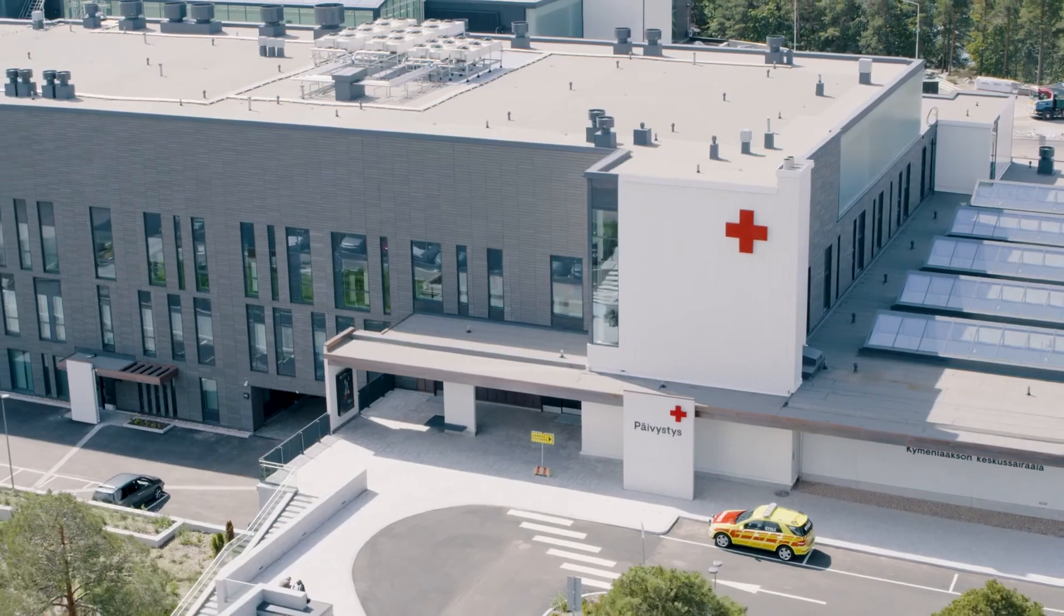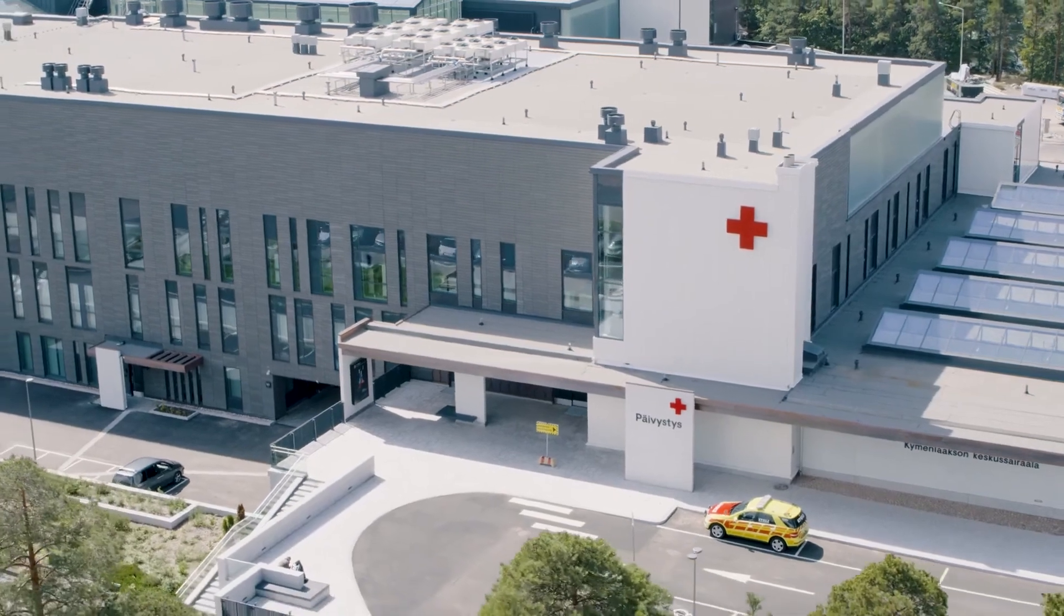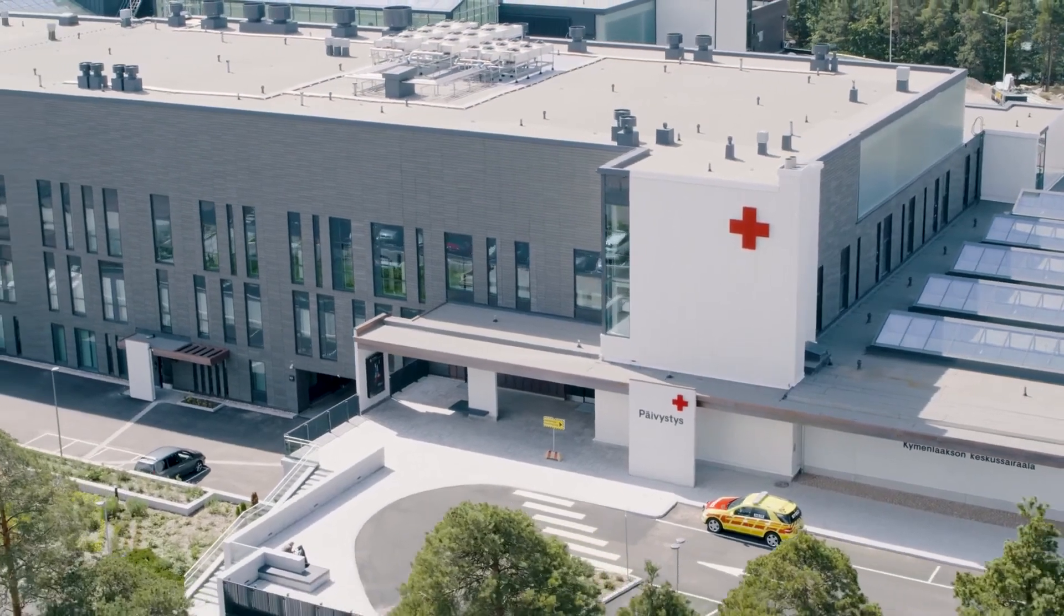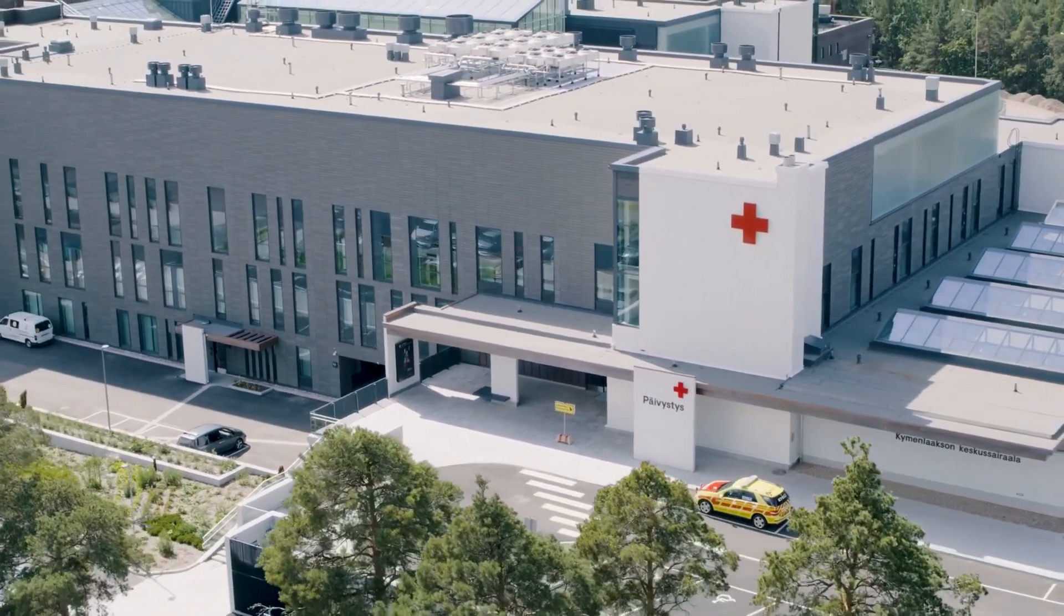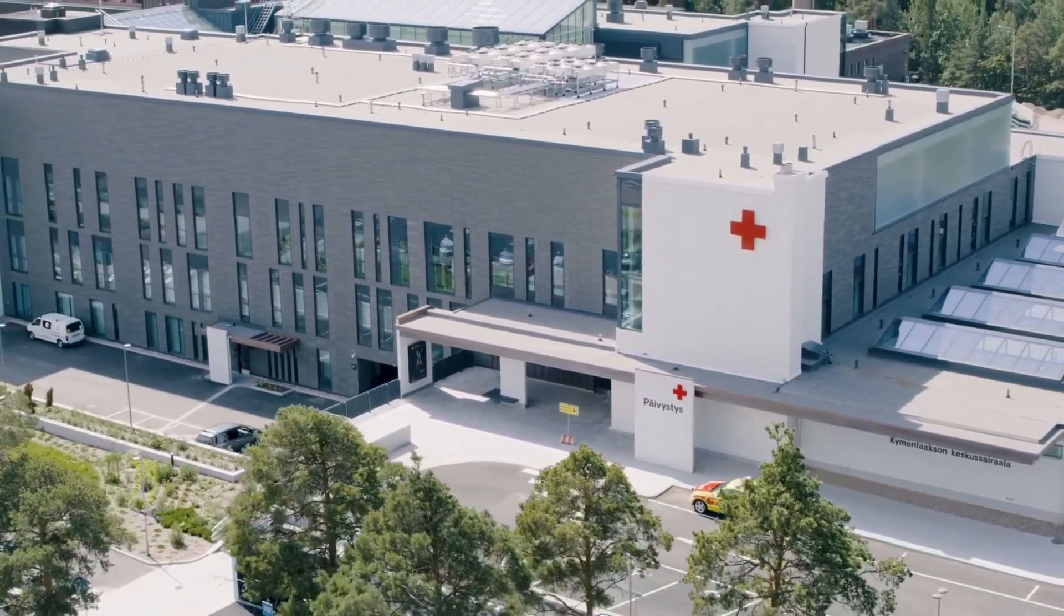Building a high-class operating room environment is an exciting but challenging project. We are there to walk the path together with you. Enjoy Nordic high-tech simplicity.